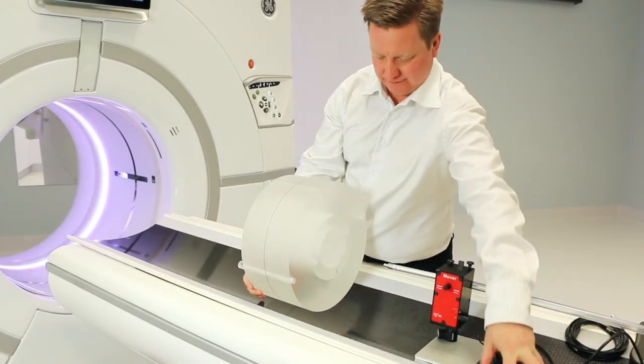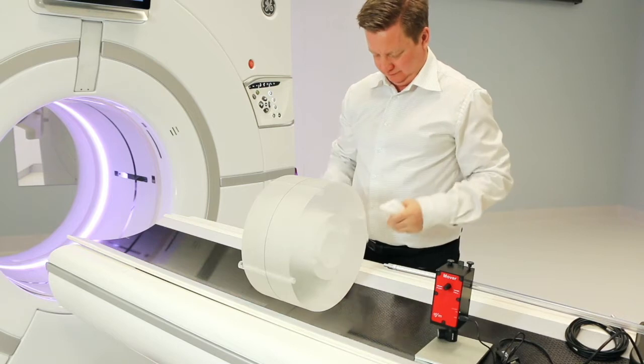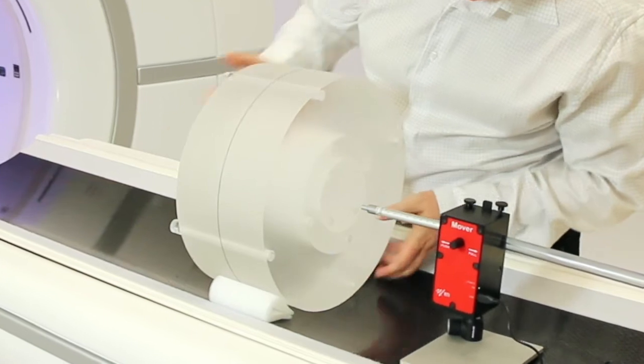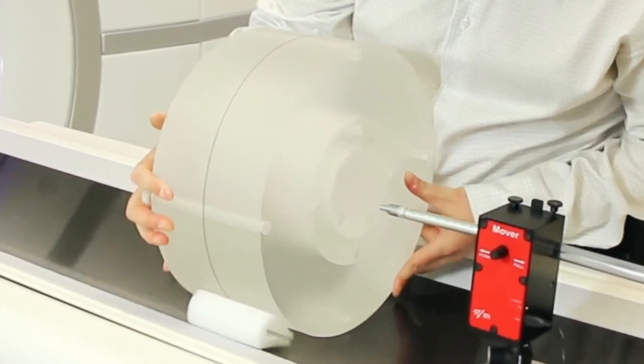Place the phantom on the table and fixate it properly. Align the peripheral holes to be in correct position. 12, 3, 6 and 9 o'clock.